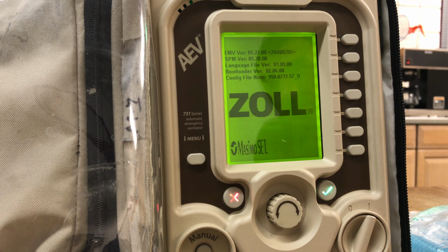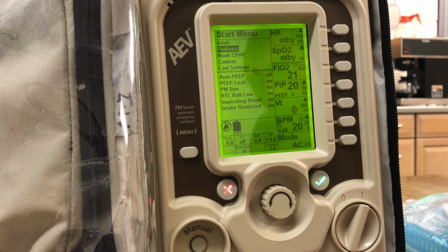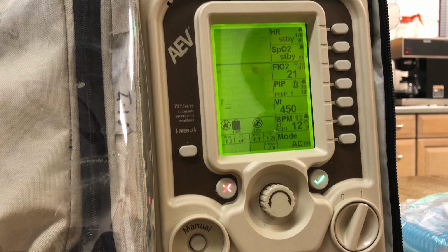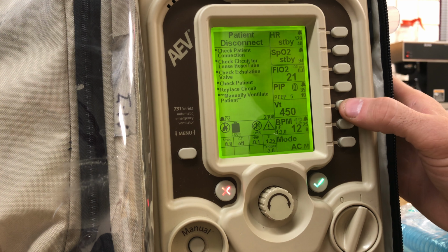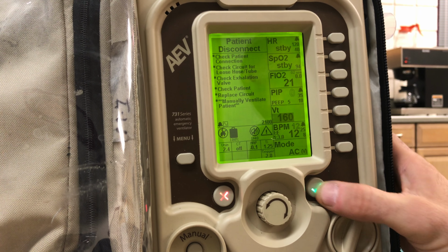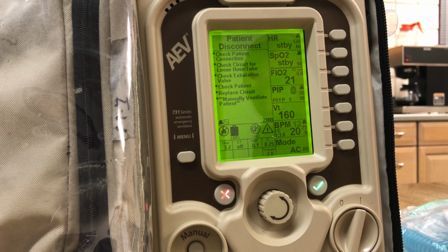It comes on. I'm in adult mode. I go to pediatric and I notice it's an AC pressure. Okay, so I can simply switch back to adult mode. That's going to be normal, that we're normally familiar with. I can just leave it in adult mode. The things I need to change now are I need to adjust my tidal volume, which I have to do on every patient anyway. I put it down to the tidal volume that I want for the child, my check mark, and I adjust my breaths per minute up to 20. And the ventilator's ready to go.